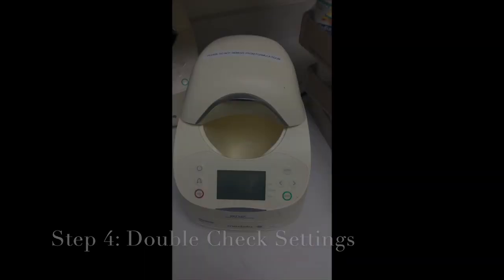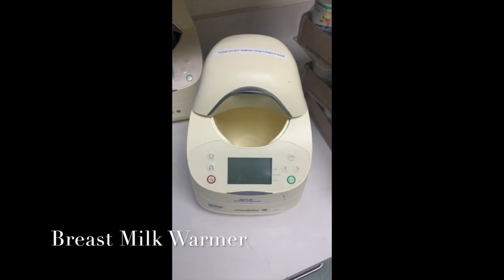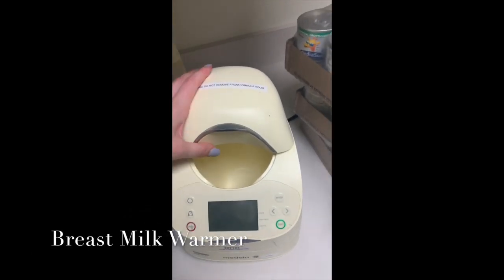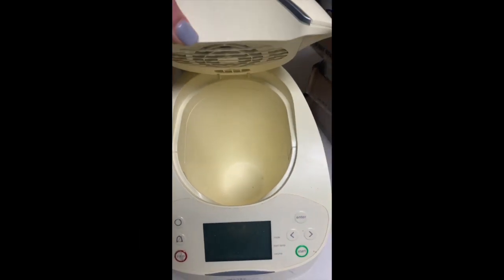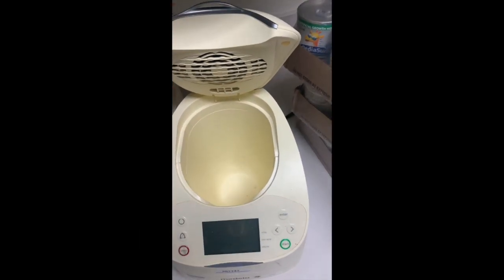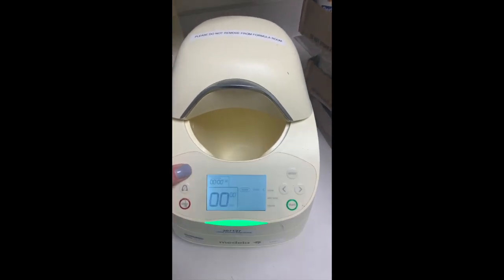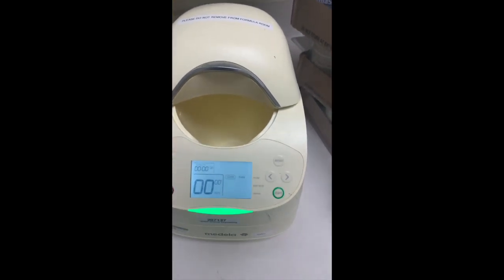And that's it. Another piece of equipment we use in the pediatric world is a breast milk warmer. Ours warms by air, so there's no water or anything in here. You'll place the breast milk in this compartment, close this, and it warms using air. So I'll show you real quick how to set it up. We turn it on.